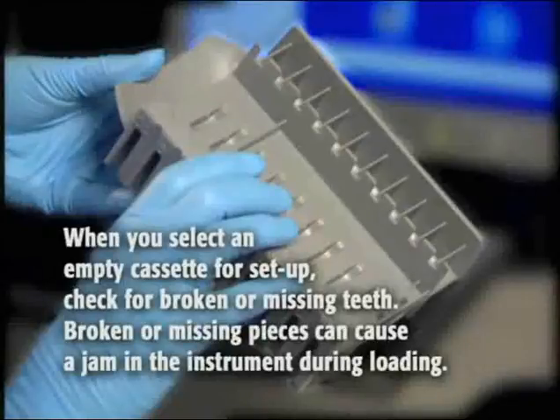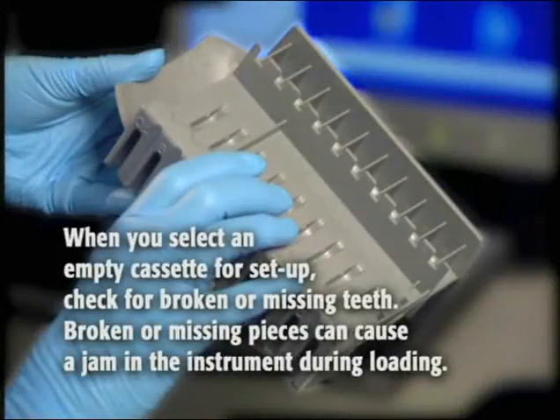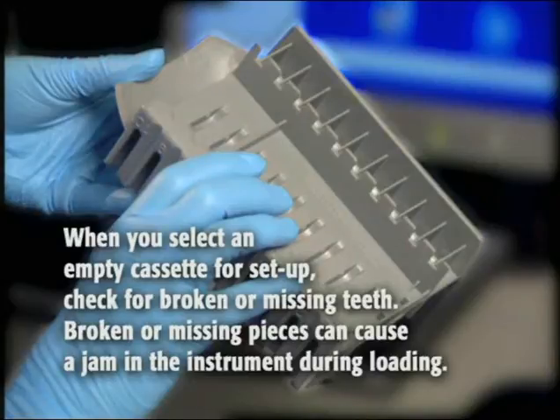When you select an empty cassette for setup, check for broken or missing teeth, since these can cause a jam in the instrument during loading.